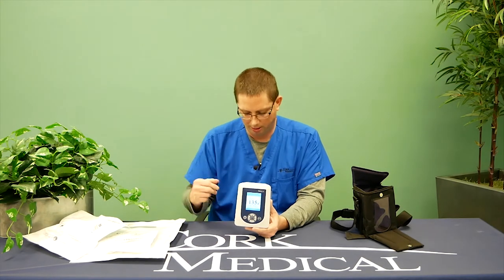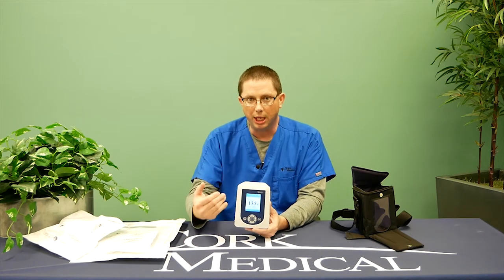While the pump is operating, if there are no visible or audible alarms on the screen, the pump is functioning exactly how it's intended to. One nice thing about this pump is that if there is an alarm condition, the pump will explain to you why it is alarming, and immediately after that, a troubleshooting guide will come up and help you fix the problem.